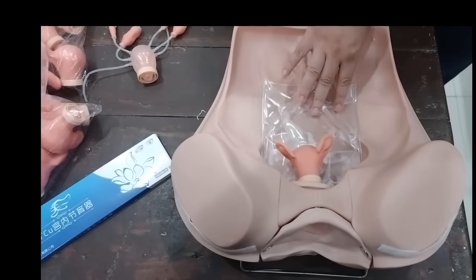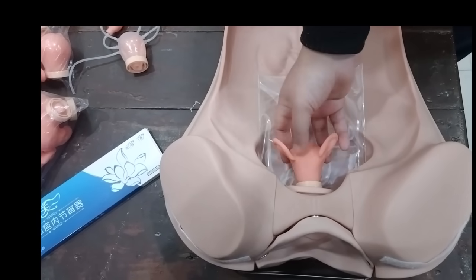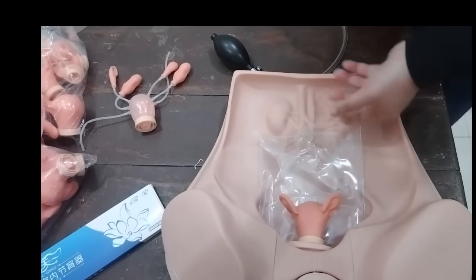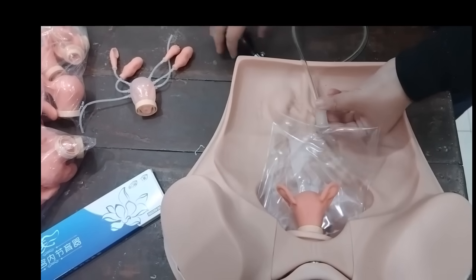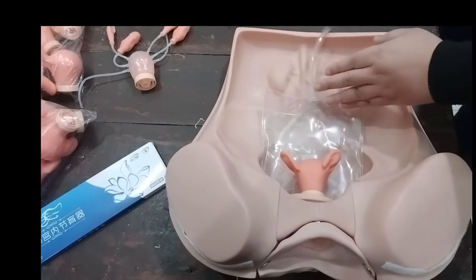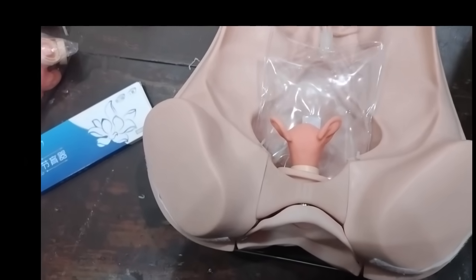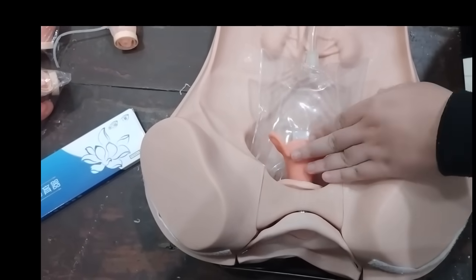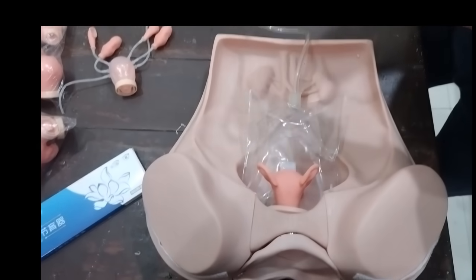Now I want to emphasize the role of this bag. This is an inflatable bag which helps in uplifting the uterus for palpation purposes. If I need to adjust the position of the uterus, all I need to do is attach this squeeze bulb to the inflatable bag and inflate it. It will lift the uterus and help us change the uterus position — it is easier to palpate if it is uplifted. And we can deflate it just like we do with a normal squeeze bulb.